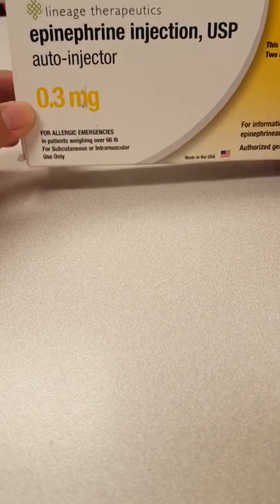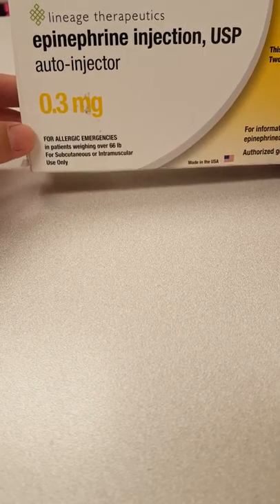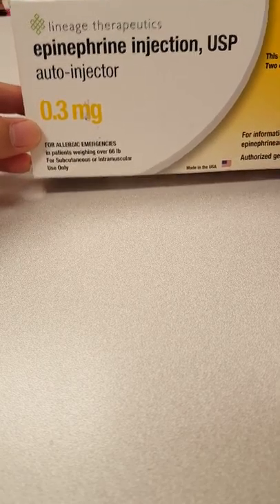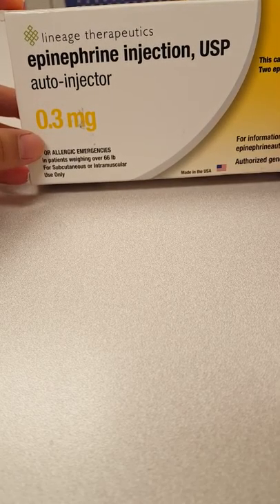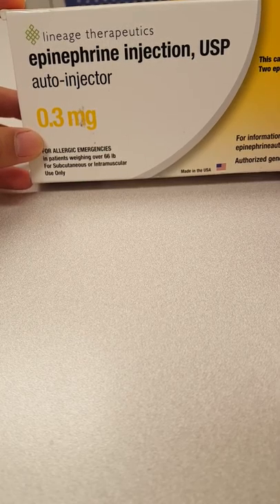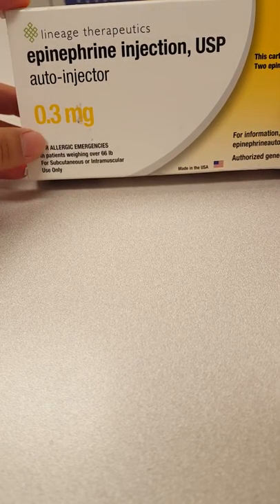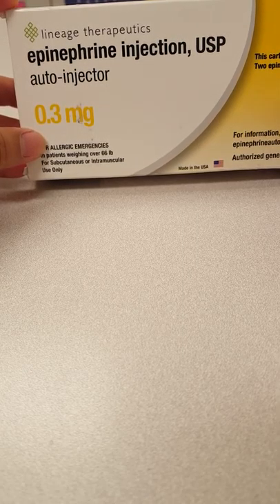This is an emergency medication. If someone always gets really itchy after eating a certain fruit they're allergic to, that's not a situation for an EpiPen. If their throat is not swelling up and it's not affecting their airway, that's not a situation where you're going to use an EpiPen.